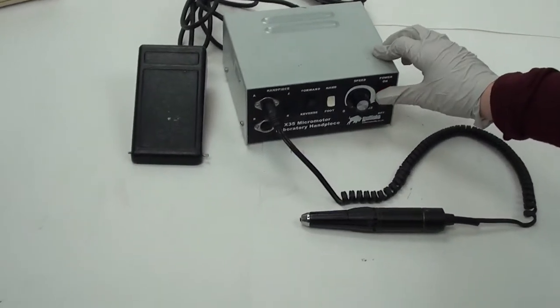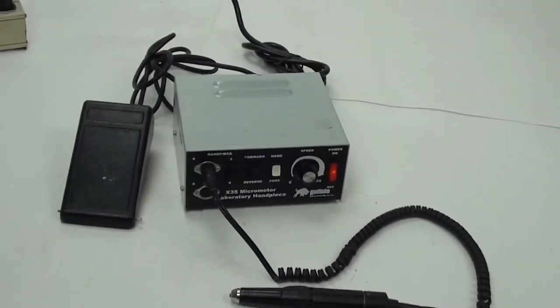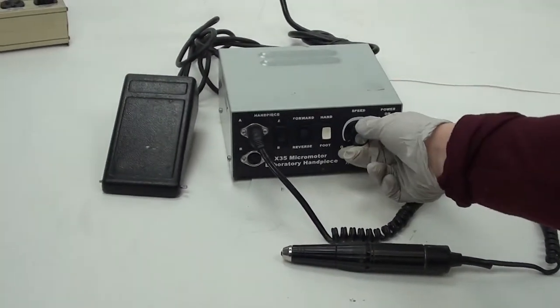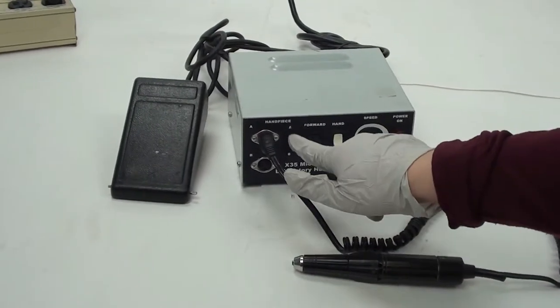I'm going to go ahead and power on the machine. It's up and running. Here you control the speed and if you want to do hand or foot.